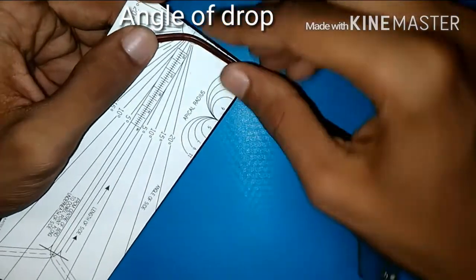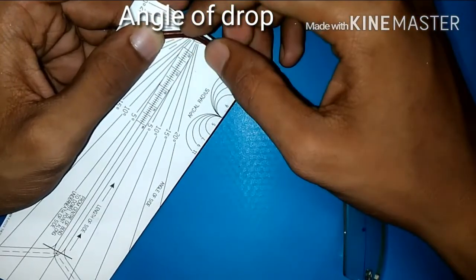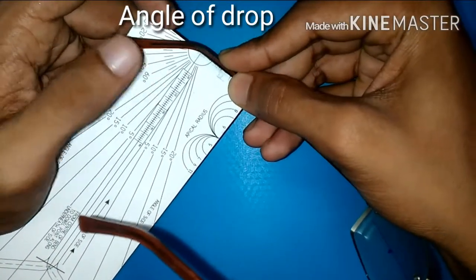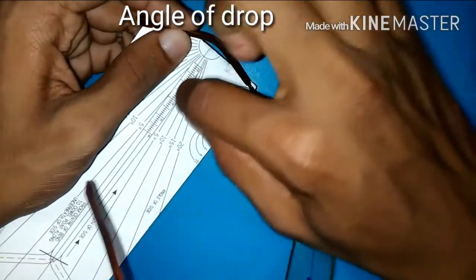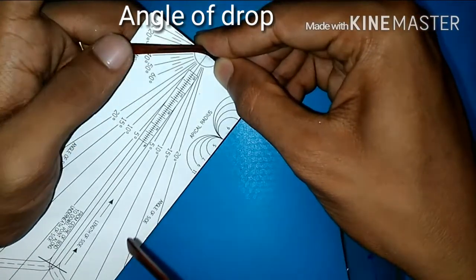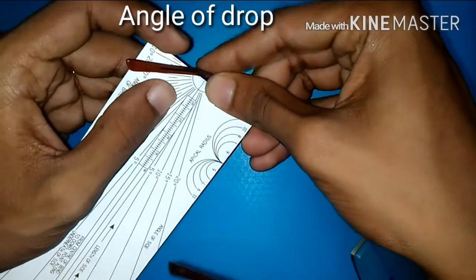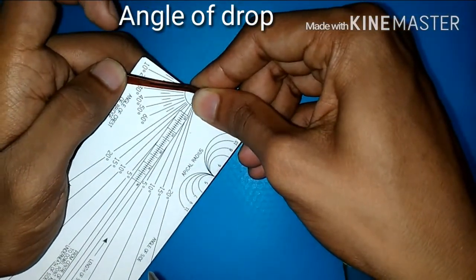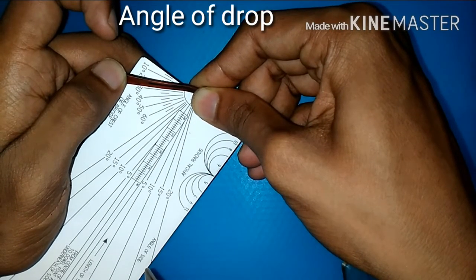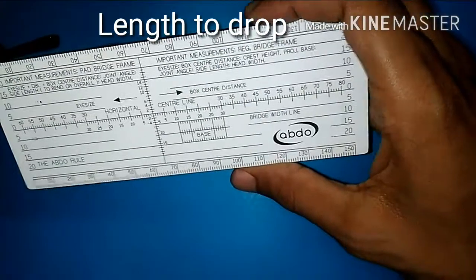The downward angle of drop is the angle at which the length to bend drops. To measure that, place the temple along the sides of the ruler and the ear point along the horizontal line, and measure the angle given by the reading. For this frame the angle of drop is around 30 degrees.